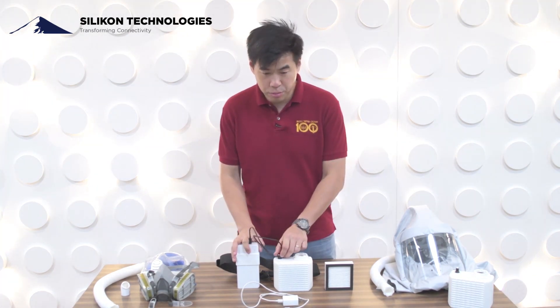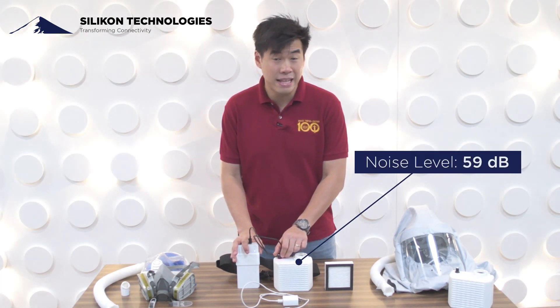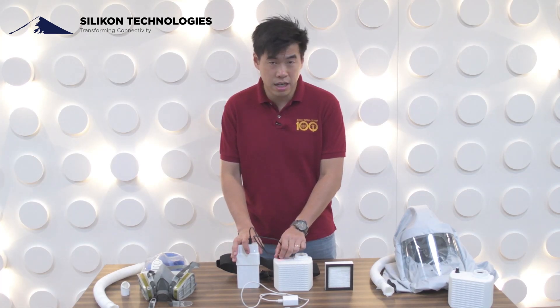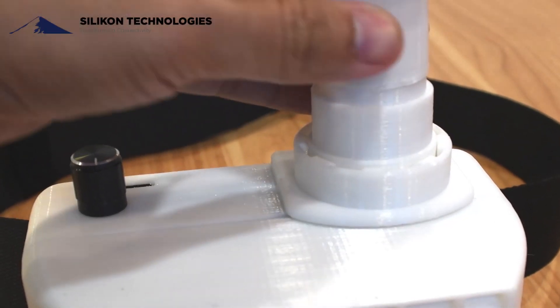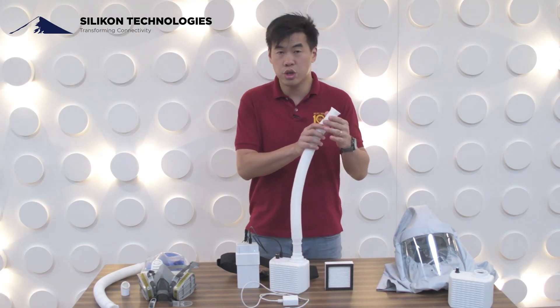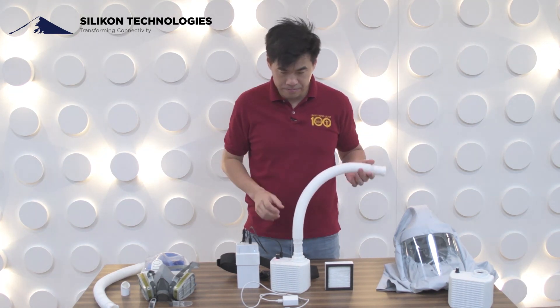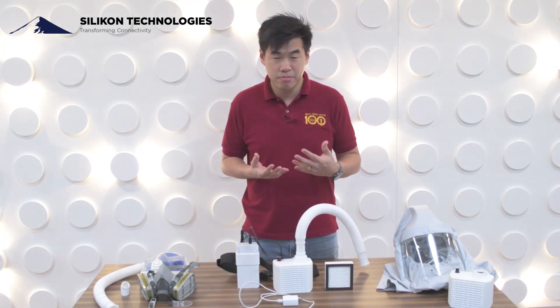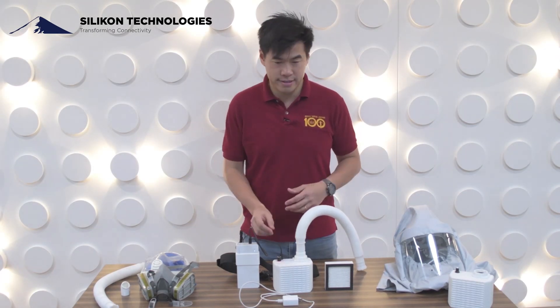Just for your perspective on the noise level — it's rated at 59 decibels at max airflow. Right now there's a bit of noise, but actually if I put the air hose in it gets a bit more muffled, and if I put the hose or the half-mask on the other side, the noise gets quieter. So right now while I'm talking you can still hear me because 59 decibels is like regular conversational noise.